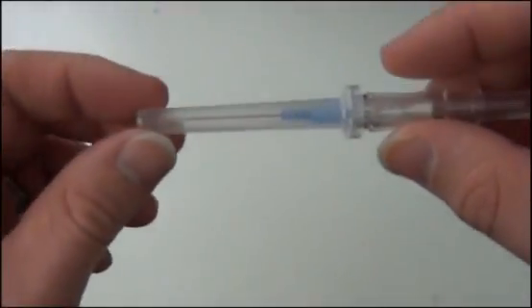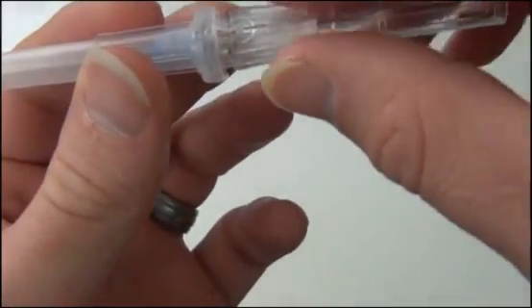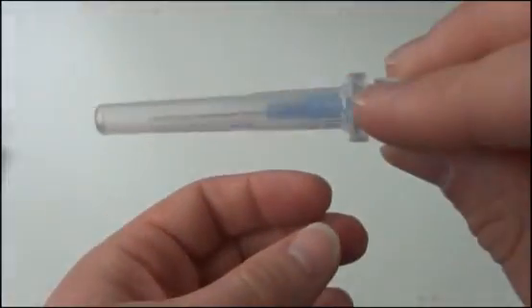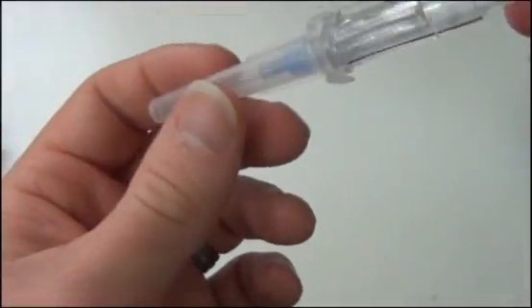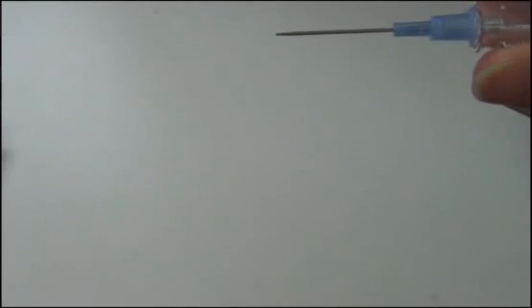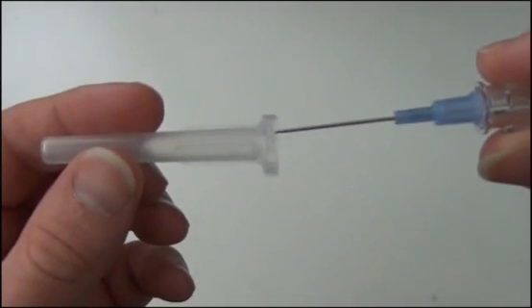Inside what we have here, you have your hub here, the needle right here. And then this is where you hold and advance the actual catheter. So you'll pop this off. And that is what protects the actual needle and everything. So you can take that off, toss that aside.